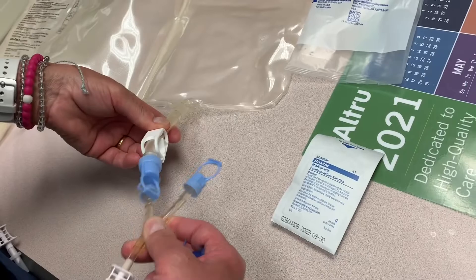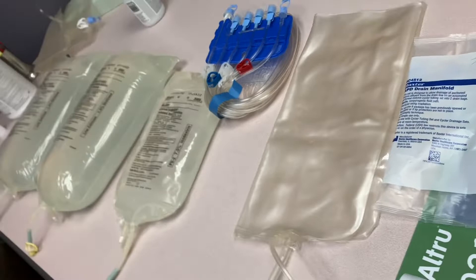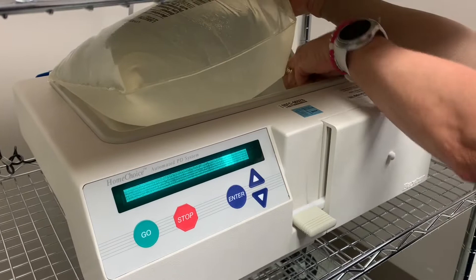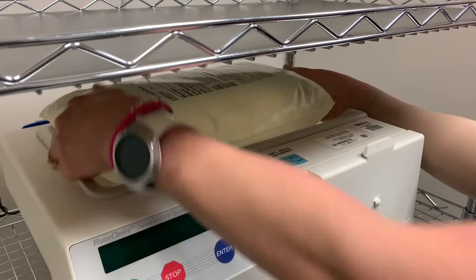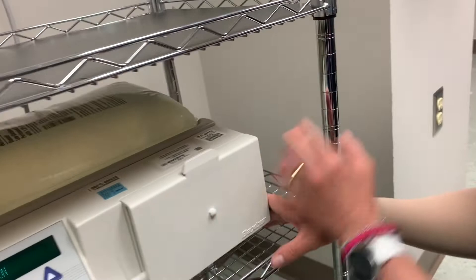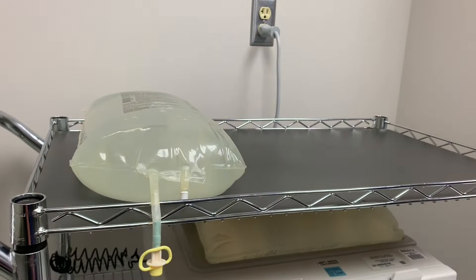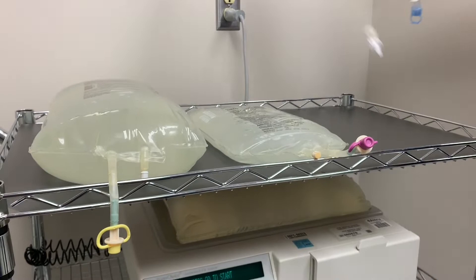Take one of the big bags and turn on your machine. Place one of the six-liter bags on top of the machine — it's a heater, and the little silver circle here is the thermostat. You can flip them around so they lay flat on top. Put the other six-liter bag up there, with the last fill Extraneal bag as well.